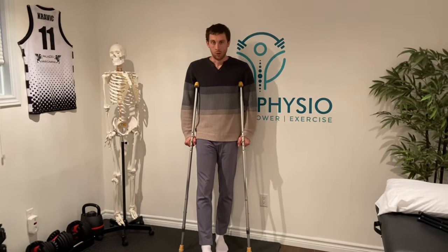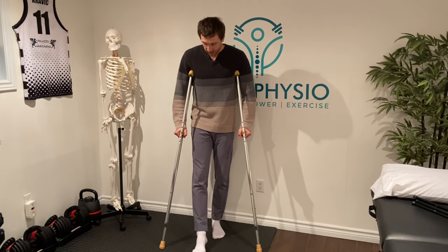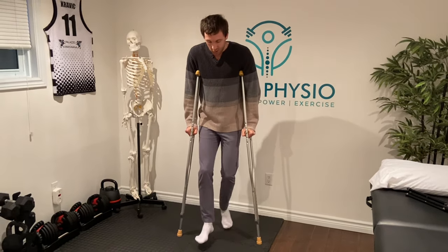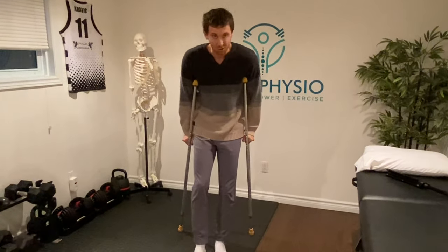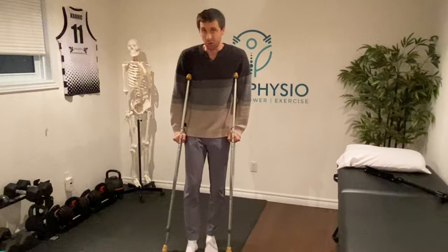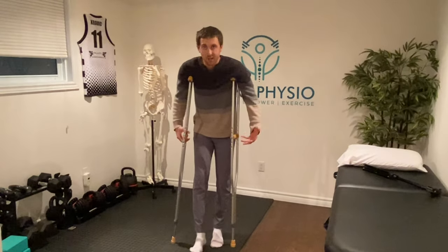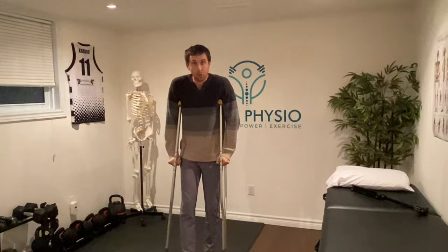When walking, you want to make sure you know your restrictions. If you can't put weight through the leg, it's usually easier to have the leg out in front. Bring the crutches forward, creating a bit of a tunnel — not too narrow, not too wide — so you can push down into the crutch and generate leverage. Lean over the crutch and take a little hop, making sure you're not going too far forward. Also, avoid resting on your crutches because there is a nerve called the radial nerve that can get irritated with prolonged use. Push down through your wrists and use your forearms.